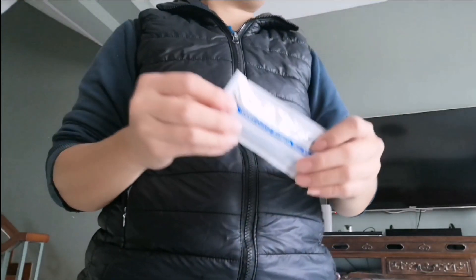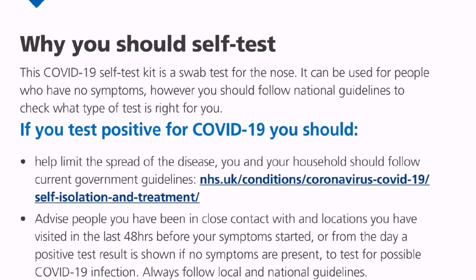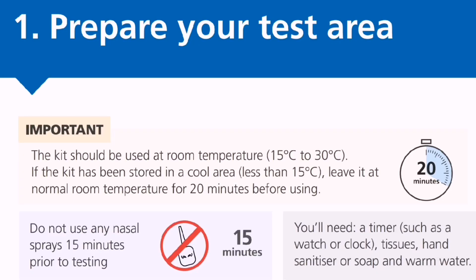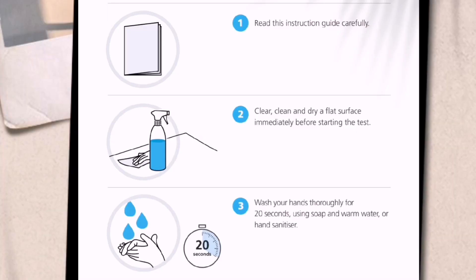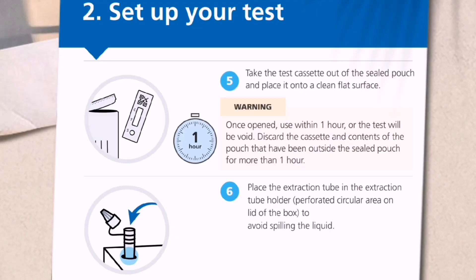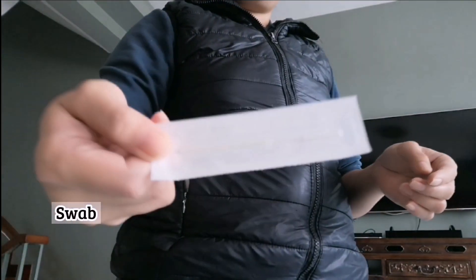This was the first time that we'll be doing the antigen self-test. Medyo nanghangap-hap kami, kaya basa-basa. Medyo tumagal tong video na to kasi binabasa pa namin. We cleaned the surface first and then we set up the test to be done.